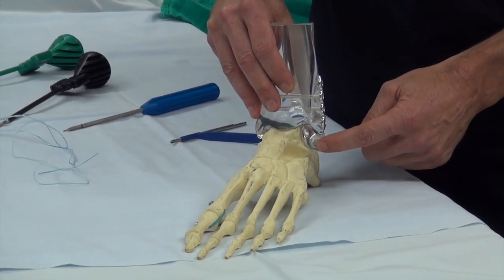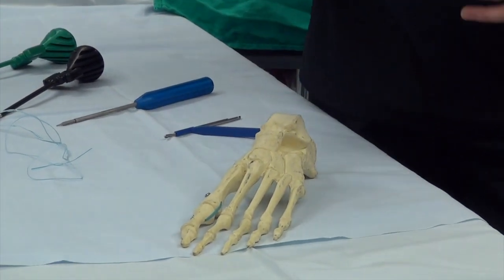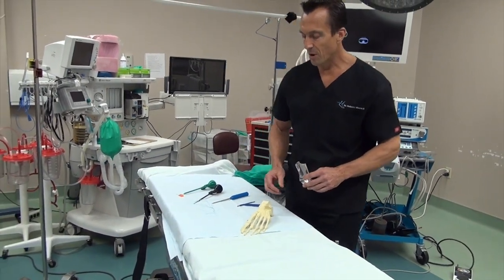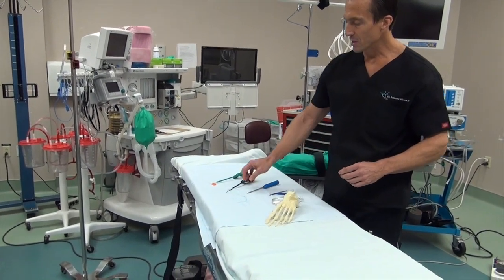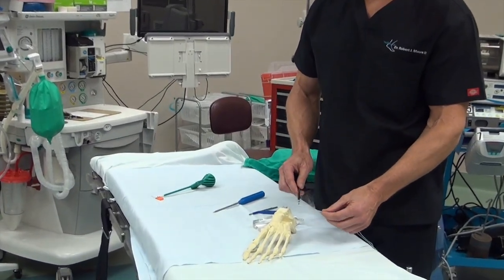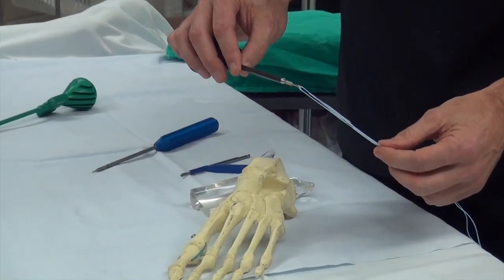Sometimes the ligament attached here at the front of the fibula and here at the talus gets a little bit stringy and it's not that tight. So with that in mind, they created the internal brace, and the system is more strong than a number five fiber wire — that's really strong. It's a double strap system that's fed through this device.